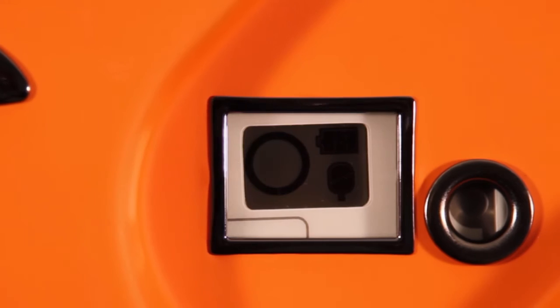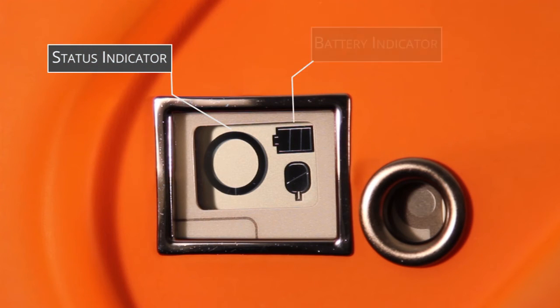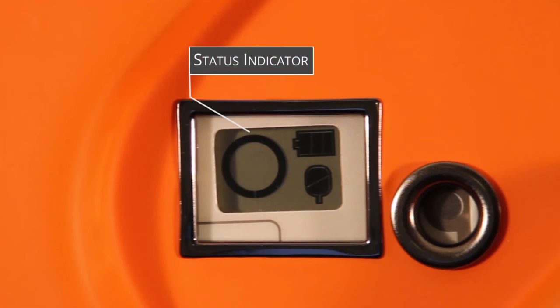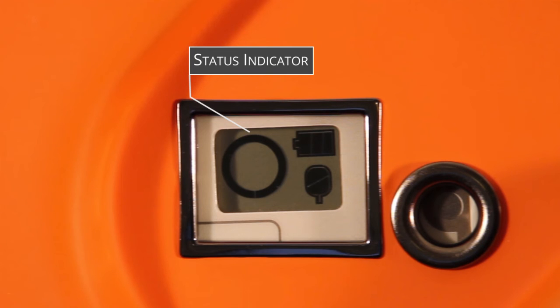One, a status indicator; two, a battery indicator; three, a pads indicator. The status indicator will indicate if the iPad SP1 is working correctly by carrying out daily, weekly, and monthly self-tests. If all tests are passed successfully, the indicator will show a circle.